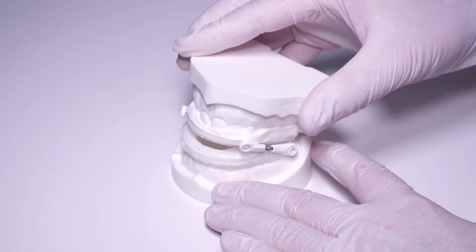It's important to always turn the two screws evenly and symmetrically to ensure the connectors are of equal length, because mandibular joint disorders might occur with an asymmetric adjustment. The patient can now insert the Tomed Somnoguard SPX in the mouth and check its fit.